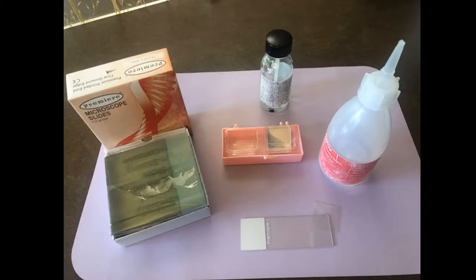Let's take a look at some of the supplies you'll need. Of course, you'll need microscope slides and cover slips. You'll need a medium or liquid to place the sample in on the slide, and a slide sealer. There are a number of sources for these materials, but one easy one-place source is Oratec, and on their website oratec.net, you can order all of these supplies. You have to register first as a licensed professional, then you have access to their professional supplies list.